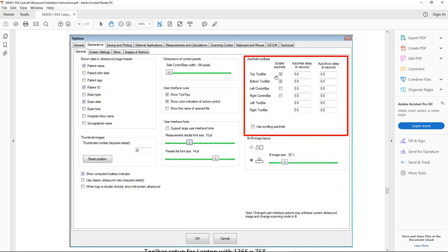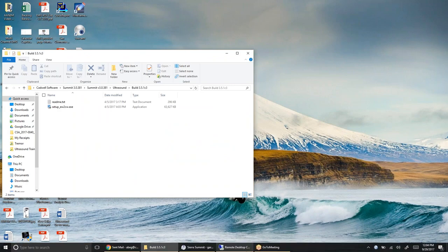If you're doing a low-resolution monitor or laptop, you need to hide the toolbars, because otherwise the software won't fit on the screen. But I think it's easier to use if those toolbars aren't hidden. I've recommended that the reps don't quote the low-end laptop with ultrasound, but they can if they want to — I just think it looks a lot better with a higher-resolution screen. As long as it's a high-end laptop or monitor, no need to hide any toolbars. That's the only thing I wanted to go over on the install.